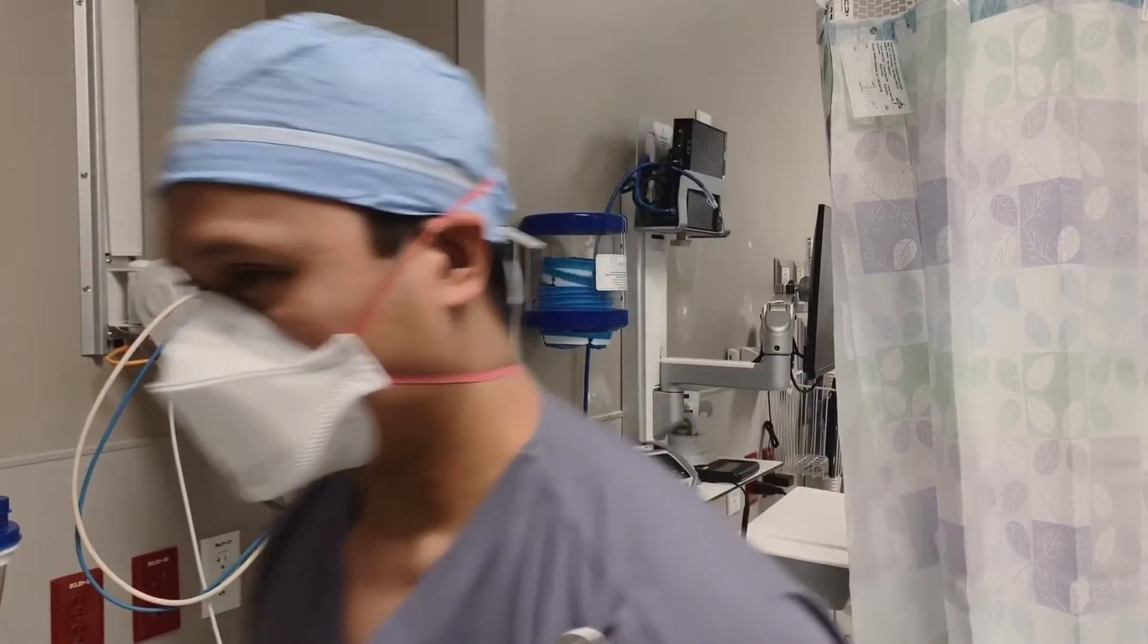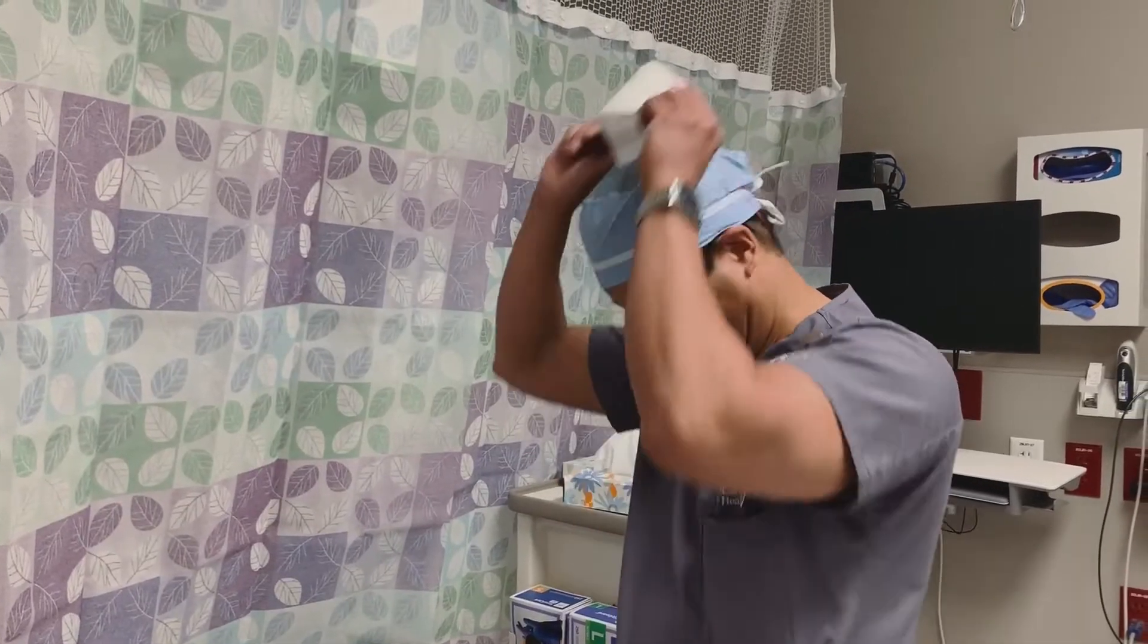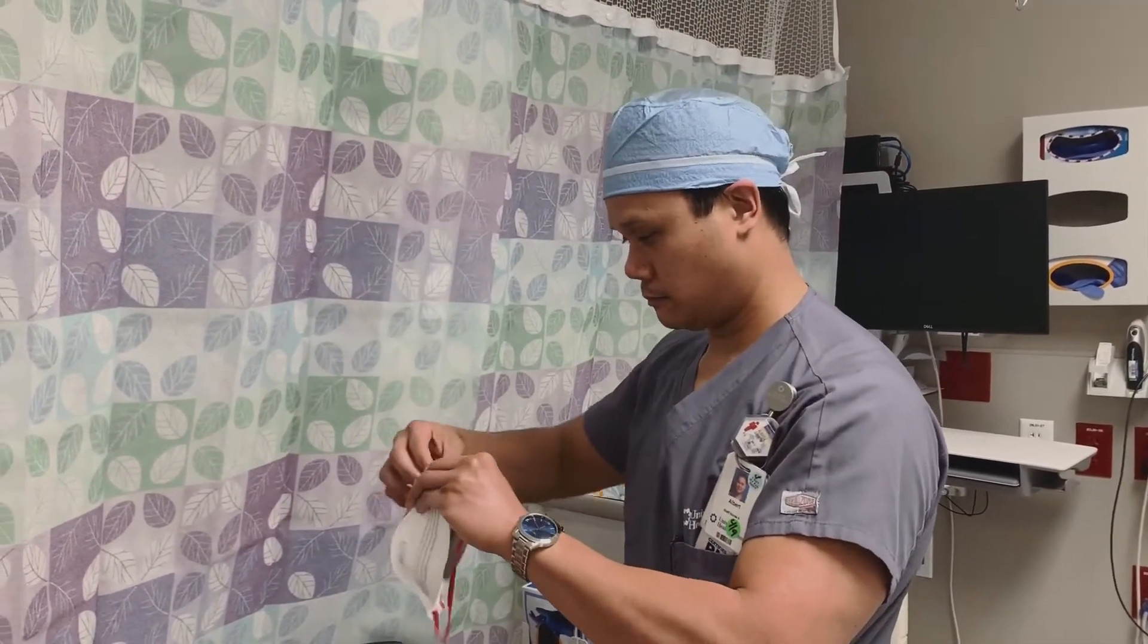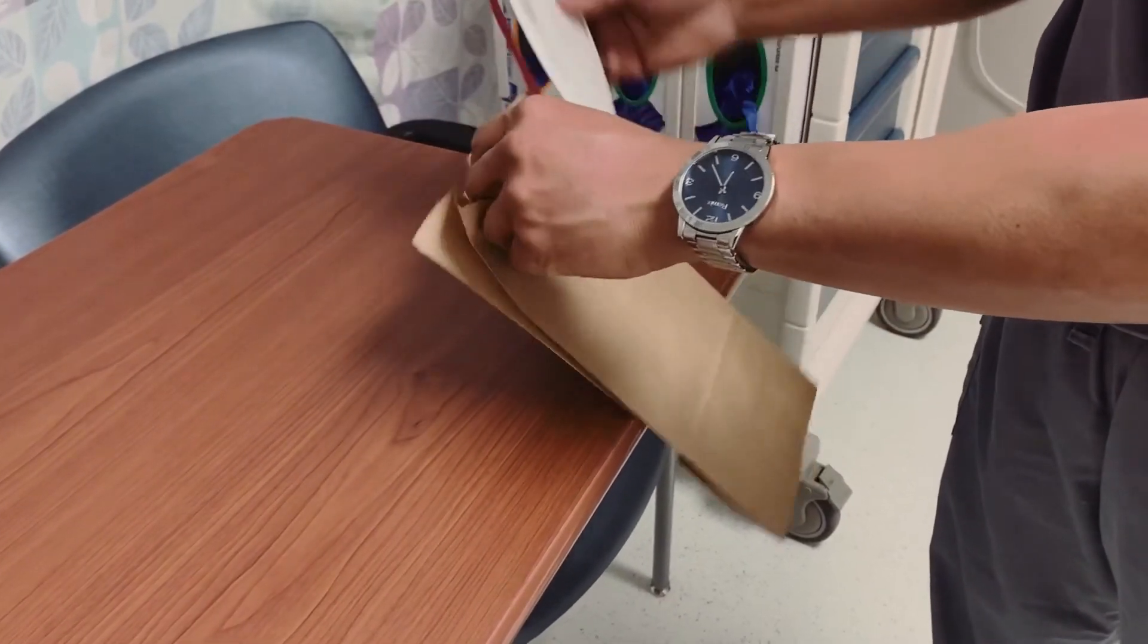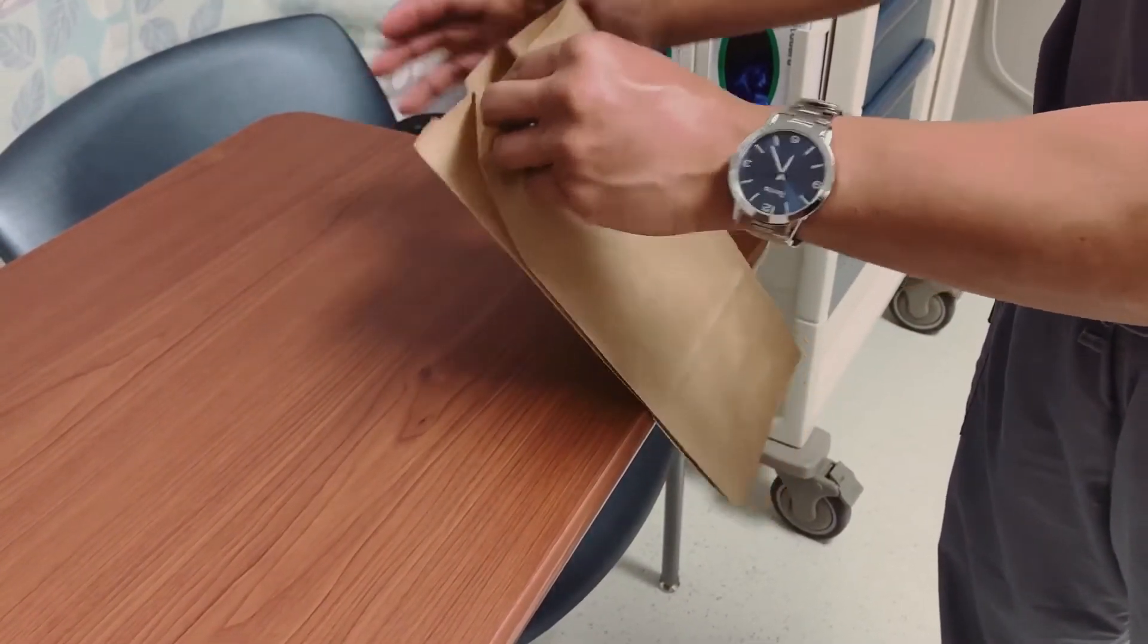The sterilization process begins at the end of a shift. The provider wearing an N95 mask places the mask in a bag that identifies it as theirs and sends it to the sterilization department.